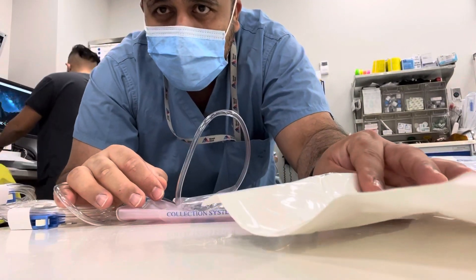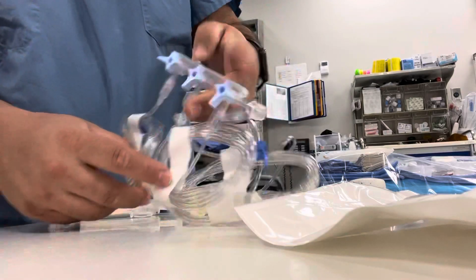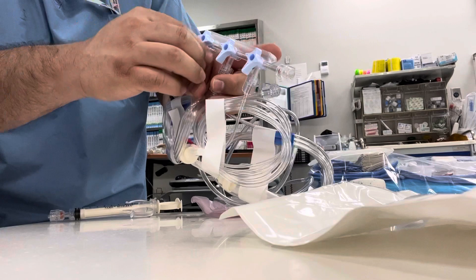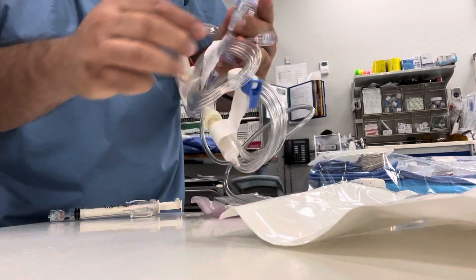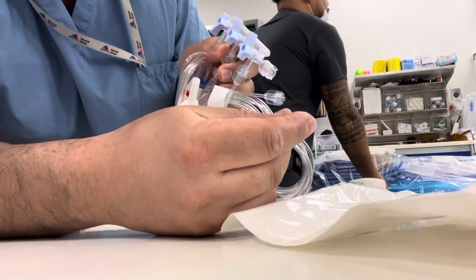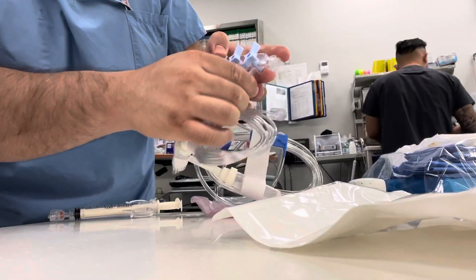In this video I'm going to show you how to set up manifolds. Hold it like that, put this down, put these two up. First, you connect the stopcock here and the tubing here. Then tighten all the lures.